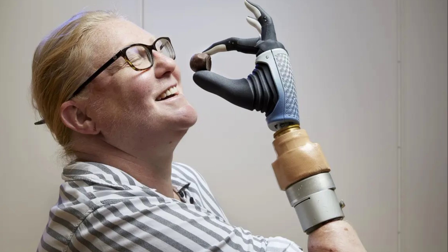Since then, Karen has been using her bionic hand for three years now, and she says it has changed her life for the better. She can now do 80% of what she used to do with both hands, such as turning doorknobs, cooking meals, typing on a keyboard, and even playing cards.